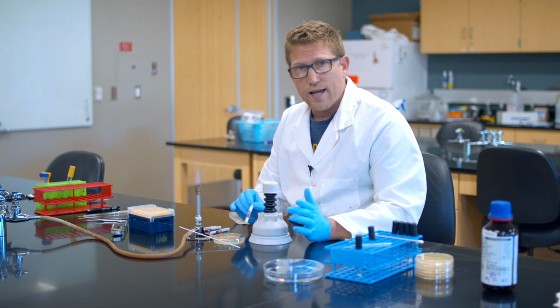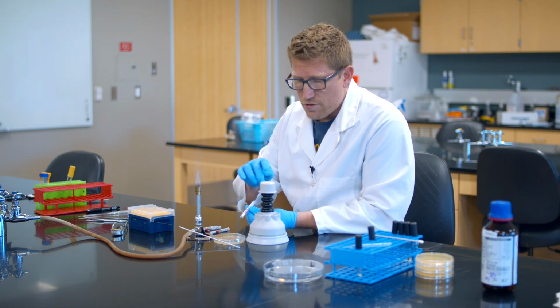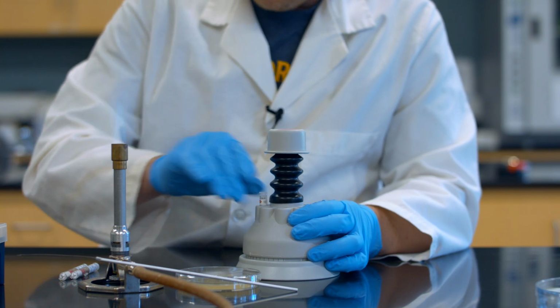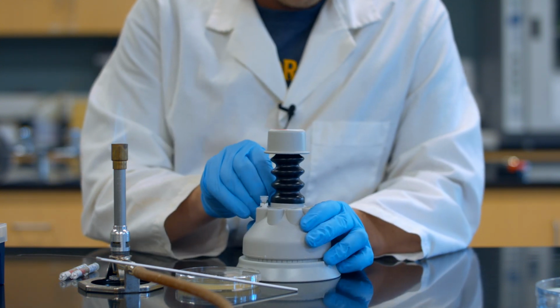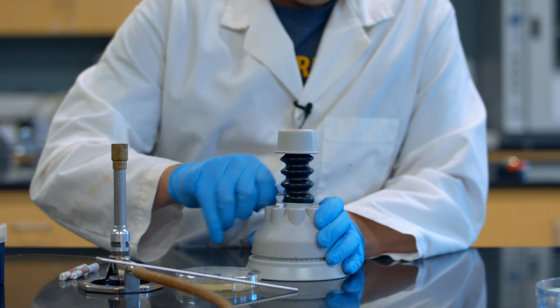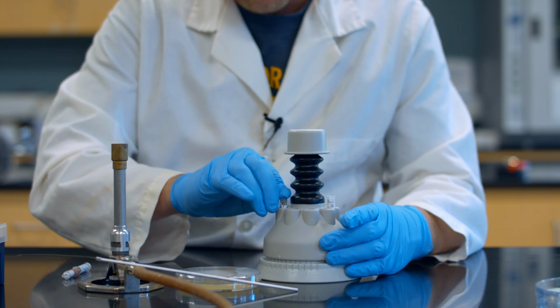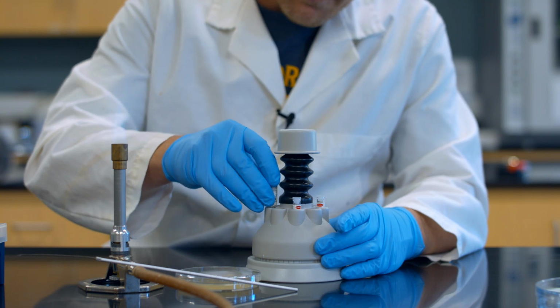disc dispenser. And there's a variety of disc dispensers out there. You have to match the type of disc cartridge that you use to the type of dispenser. This is an 8-chamber dispenser, but I'm only going to put 4 antibiotics in here, and they go in a certain way. They only fit one way. There we go. This first one didn't go in properly. I'll pull that one out if I can and get it to go in straight. There we go, and it has a nice clear click when it goes in properly. Click.